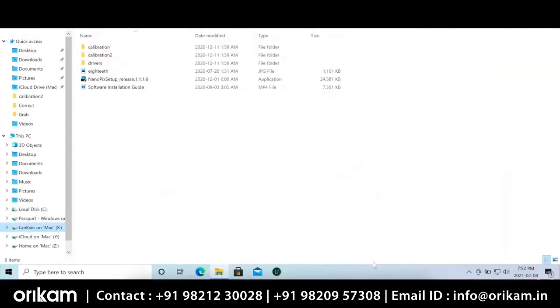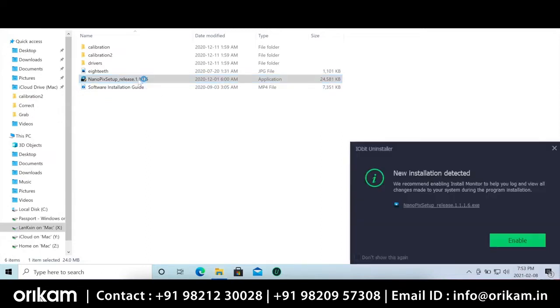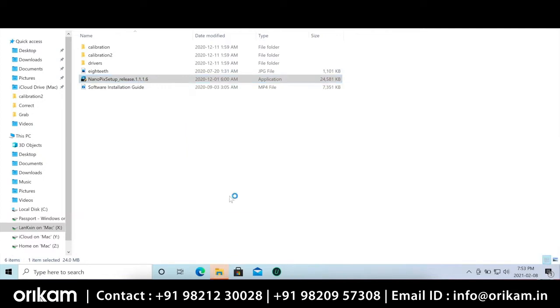Let's get started with installing the software. After connecting the USB key, you can go ahead and click the installation application. This program is super small and honestly it's as simple as one, two, three to install it by yourself. The installation takes only about three minutes and then we're ready to rock.